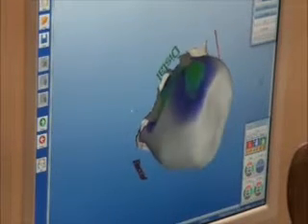The colors quantify exactly where and how hard the new crown will touch the adjacent teeth, ensuring there won't be any food or plaque traps between the teeth. The CEREC program then sends the virtual crown data to the robotic milling unit, which uses diamonds to carve the crown out of a block of solid porcelain.